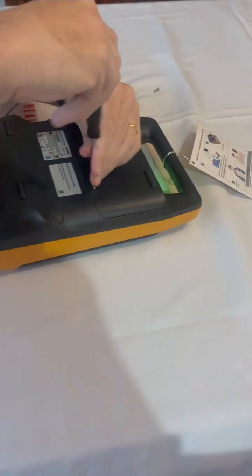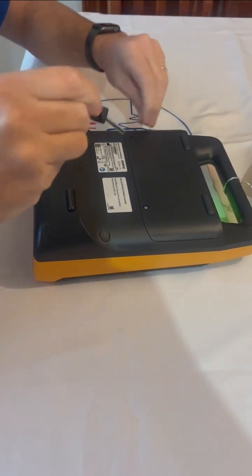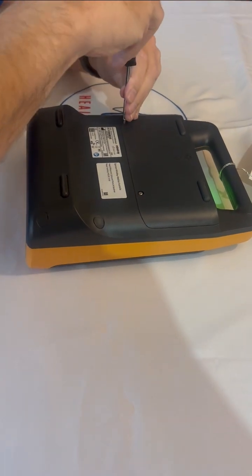Once the self-test is complete and the device is confirmed to be operational, securely tighten the screws to keep the battery cover in place.